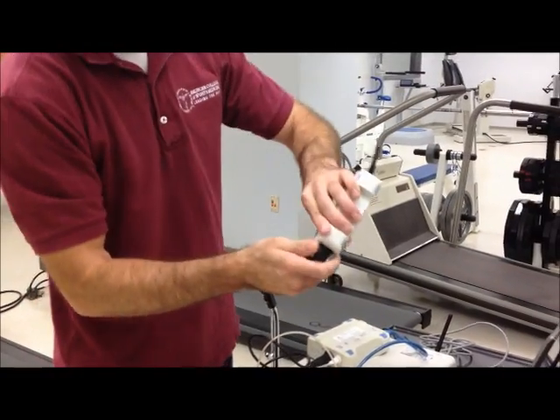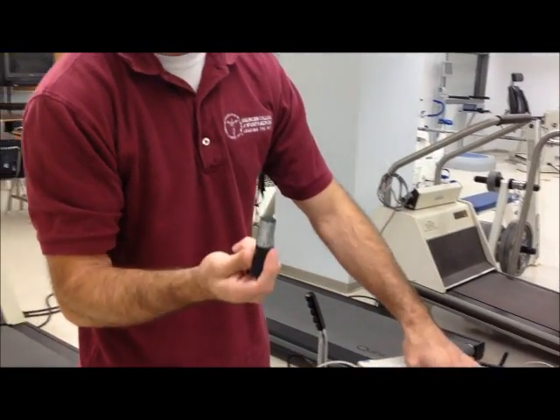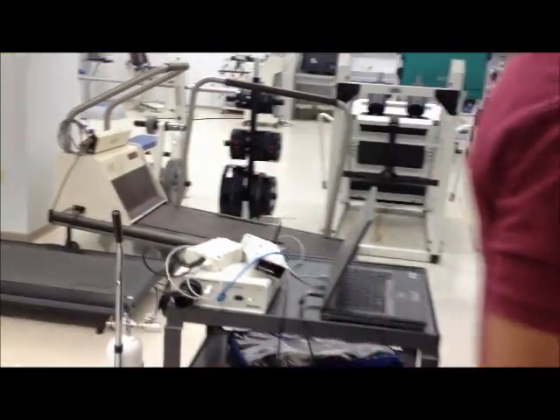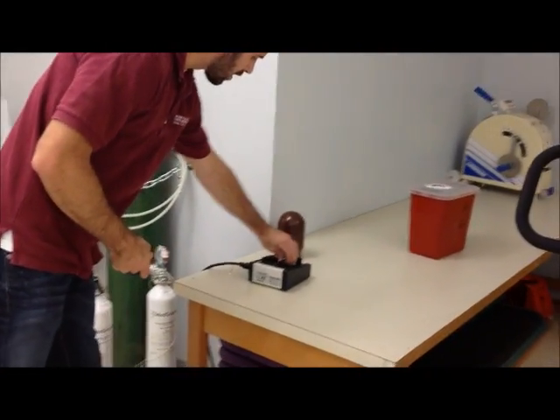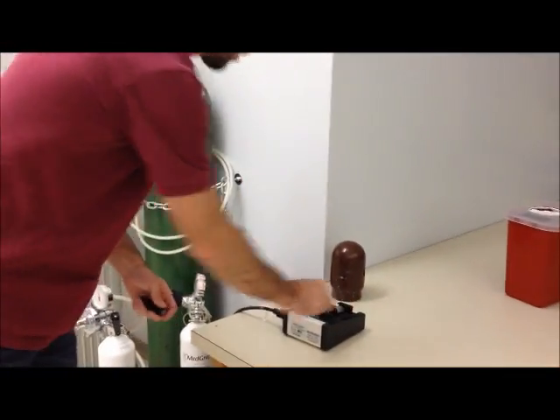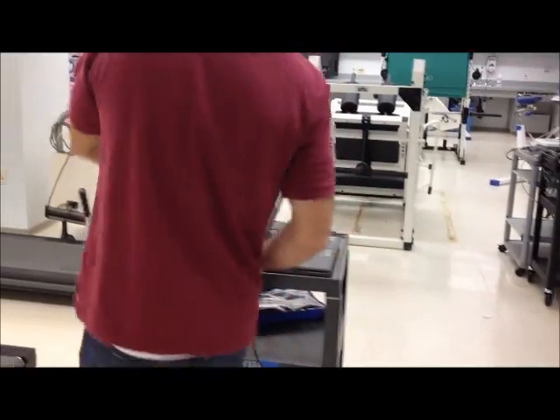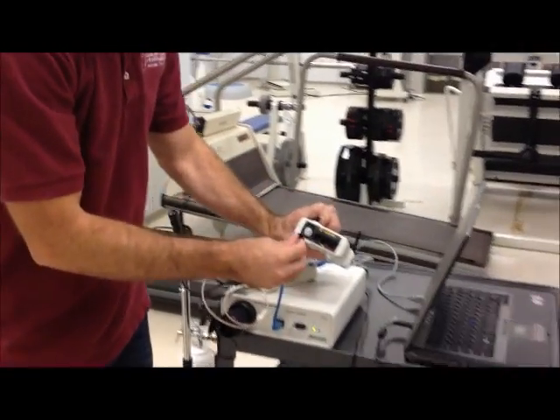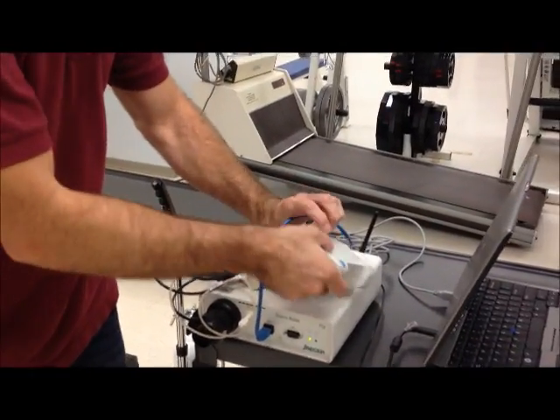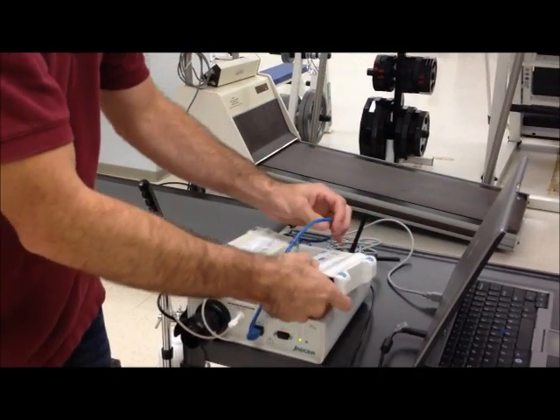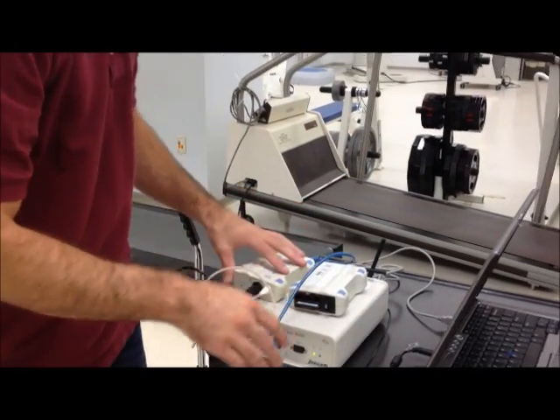But what you want to make sure it has is a new battery. So there's a battery charging station here. Just switch it out for a new one every time you do a new test, or every time you calibrate at least. So that has a new battery but we're not going to worry about that until we go into the wireless mode.